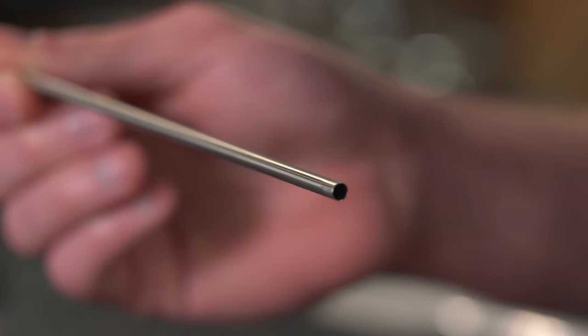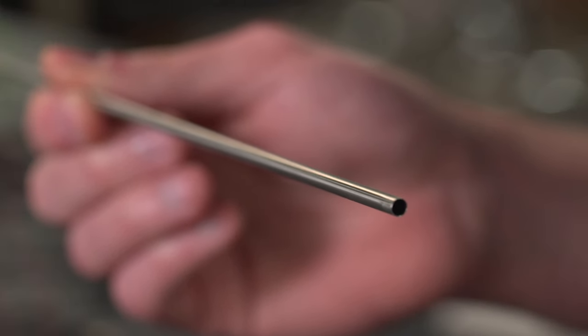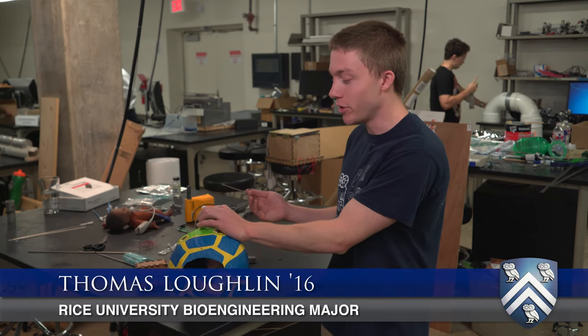This is our WOMOX prototype. It's for use during fetal surgery. This is our womb approximate, and during fetal surgery, there's a four millimeter port which surgeons use to access the womb.